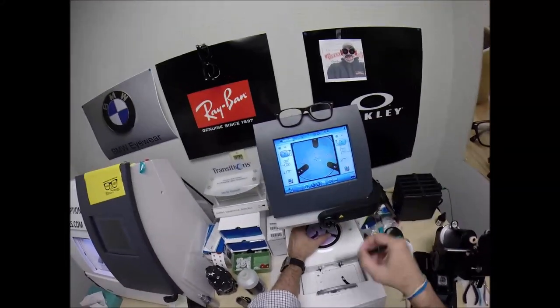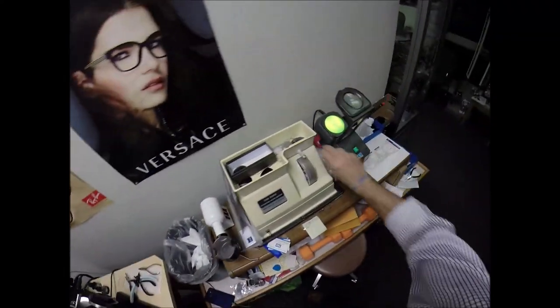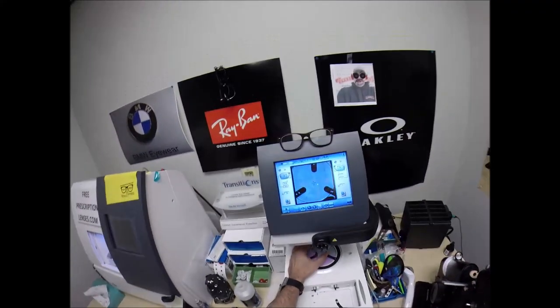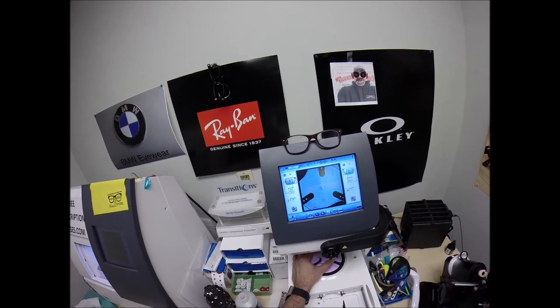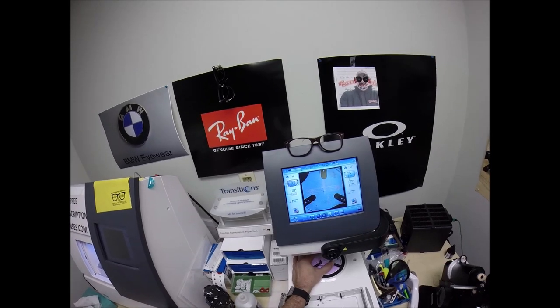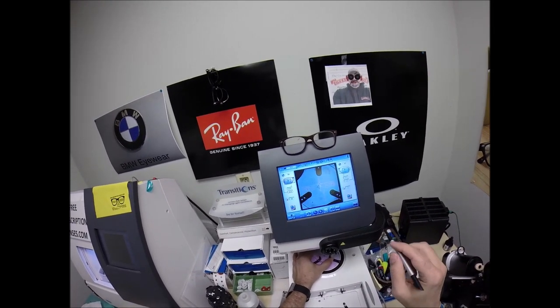The blue cross is the geometric center of your frame. Your eye is just above that and inset. Put that dot in the center — these other two dots tell me that it's oriented in there just perfectly. This is how you cut any invisible bifocal. I will be adding the Shamir Intelligence to the website soon.